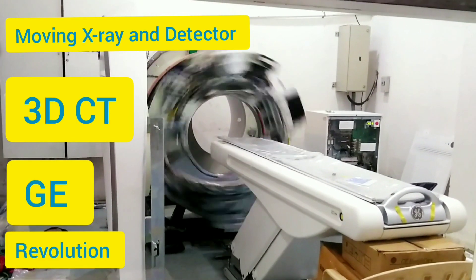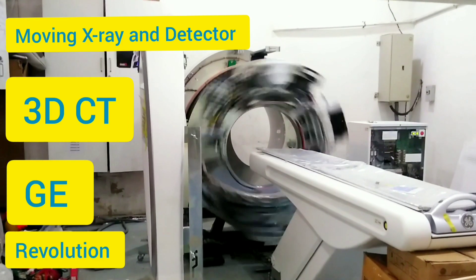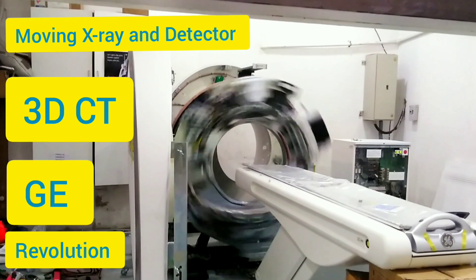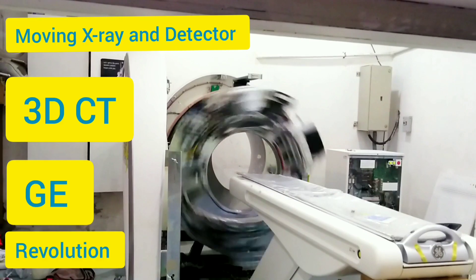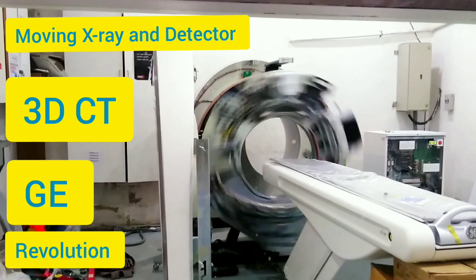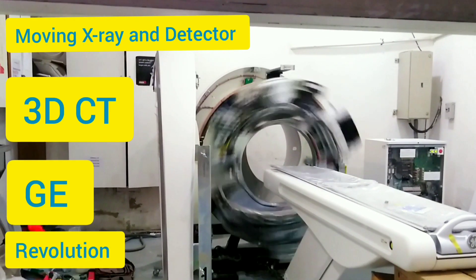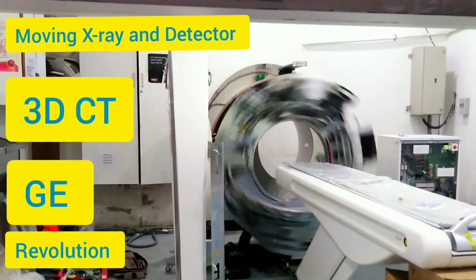Here is a look at the inside view of a 3D CT scanner.